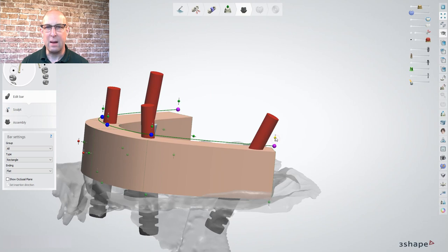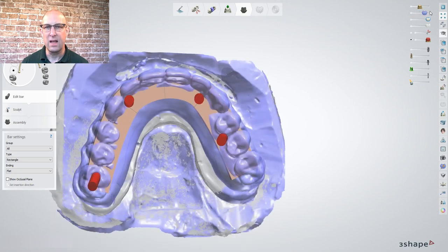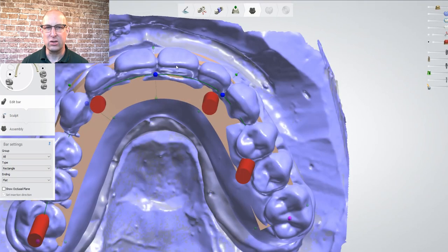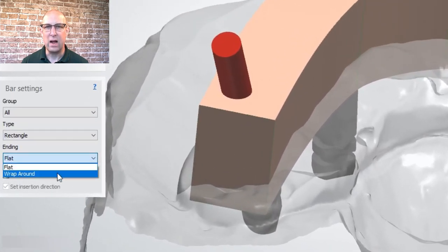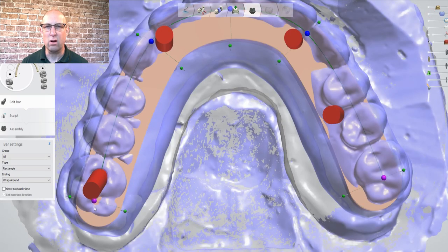Important is that the bar posts are completely covered with 2mm material thickness, since the bar usually fractures at these thin spots. Make the pre-preparation scan 100% visible and check for facial intersections by the bar — carefully correct them by pulling the bar in until they are covered. Under bar settings, at ending, select wrap around and adjust the bar so it's 2mm away from the distal wall of the last tooth.